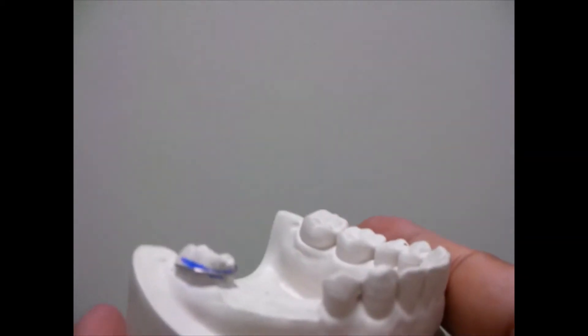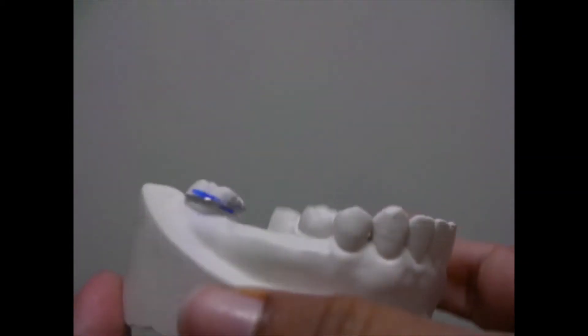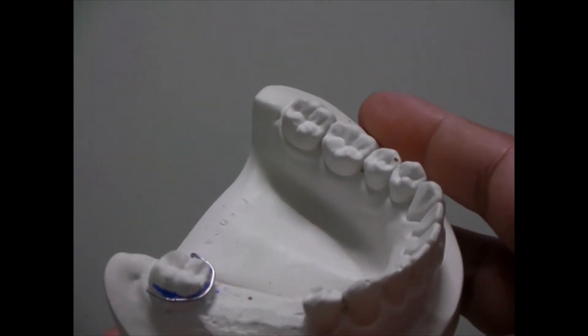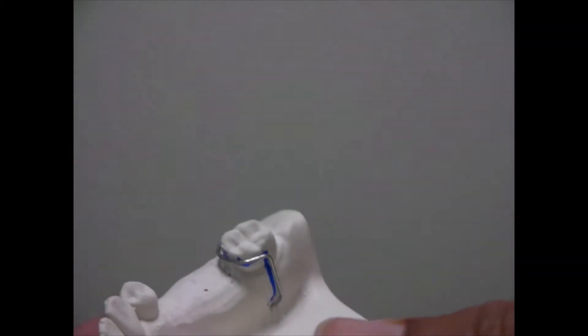So let's talk a little bit about clasps. Clasps can be of various shapes and designs and you will study these in detail when you study the subject of prosthodontics.